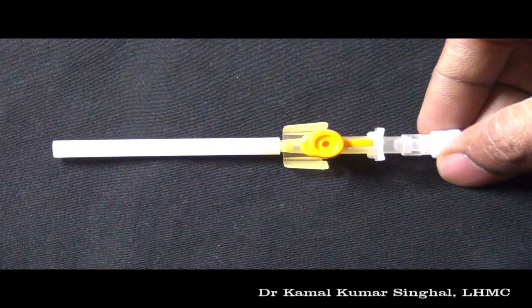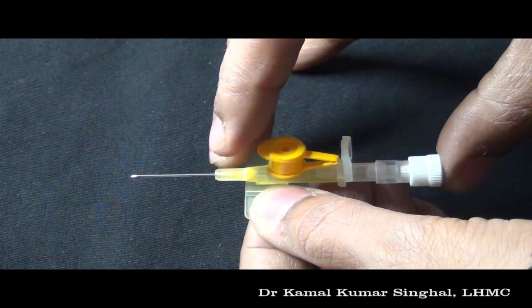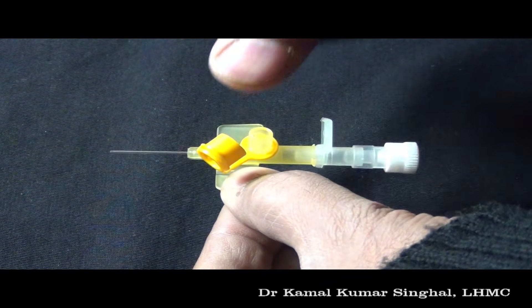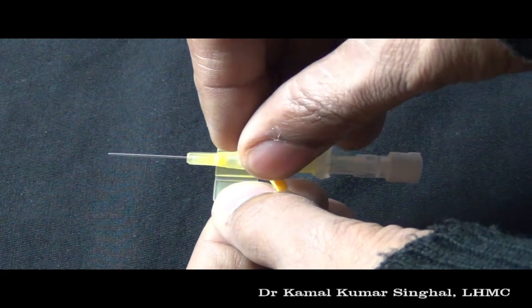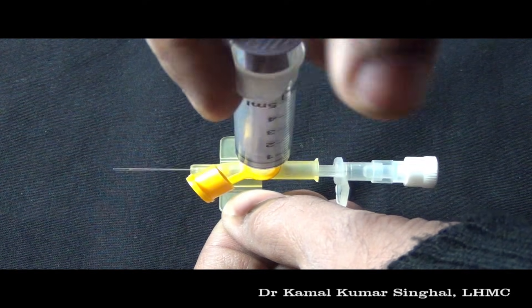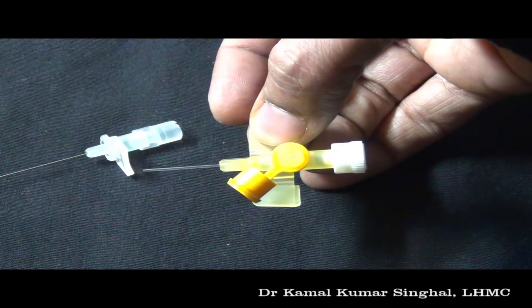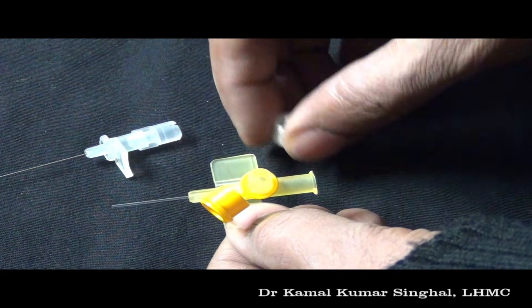This is a catheter used for intravenous and sometimes intra-arterial catheterization. It consists of an inner needle and an outer plastic catheter. This is an injection port which has a one-way valve, so the drug can be pushed into it but will not come out on its own. This is the cover used to cover this port. To give an injection, you open this port and connect a syringe to push in the drug. Once inserted, the inner needle is removed and the plastic catheter remains inside the patient. You can also use a syringe to give drugs to the port which does not have a valve.